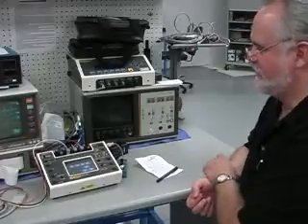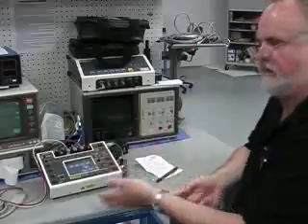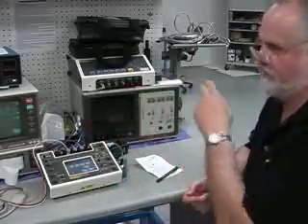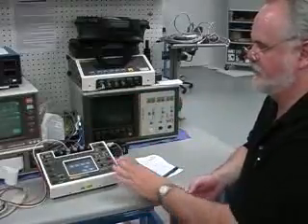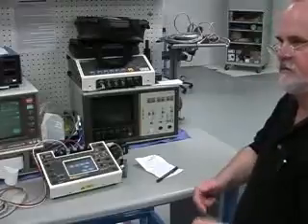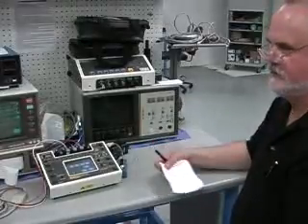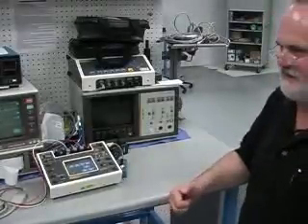Okay, well, I've about talked myself out on this. If you have any questions as you use it, let us know, because what I do want to do is make a little inventory and make sure that we've got all the cables that you need to run this. So we can take that up and walk around and get some blood moving through me. Great, thank you.